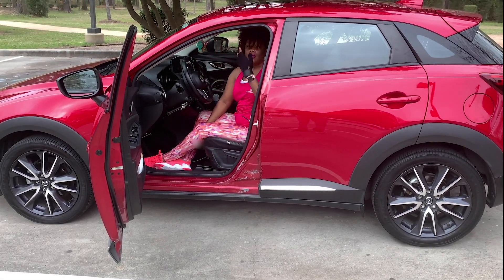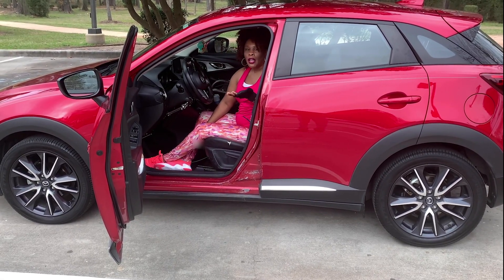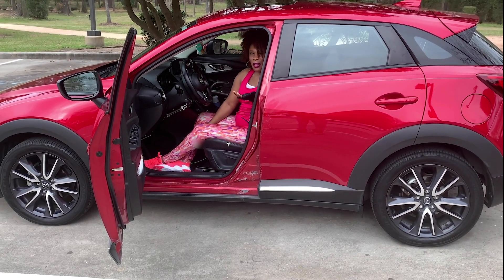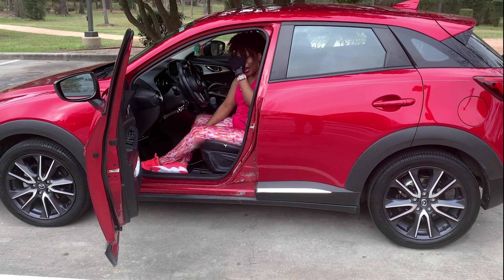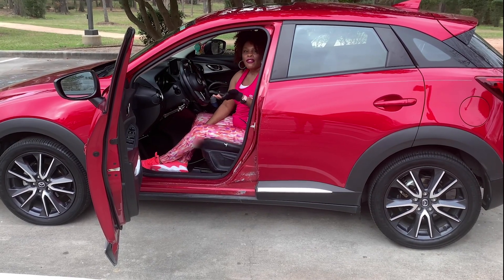The more you do this, the quicker you begin to get at doing it. Normally it takes me about at least a minute or so. And this is my place in the car.